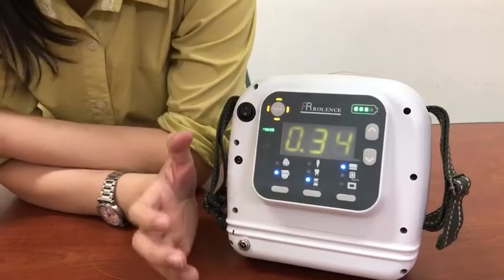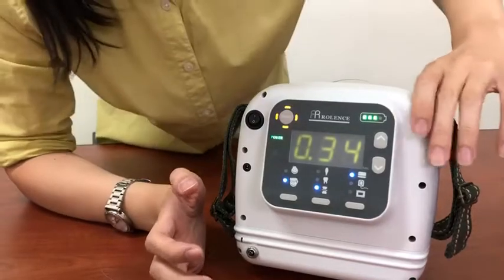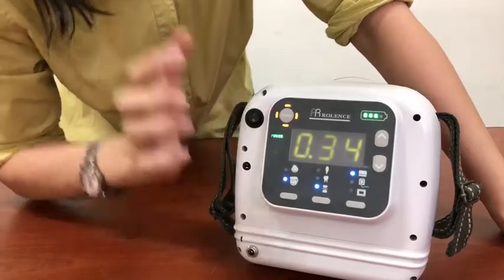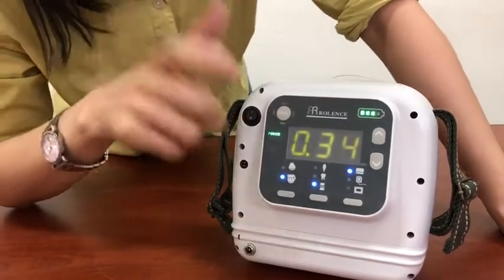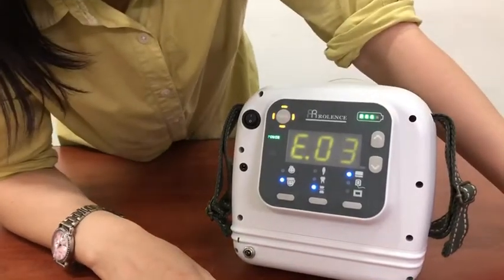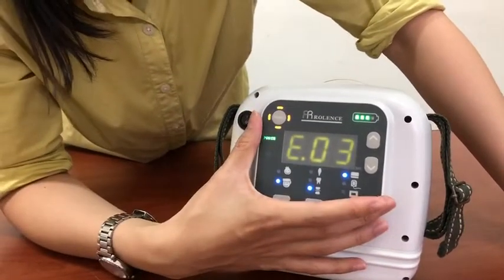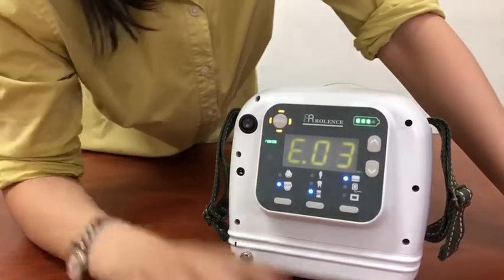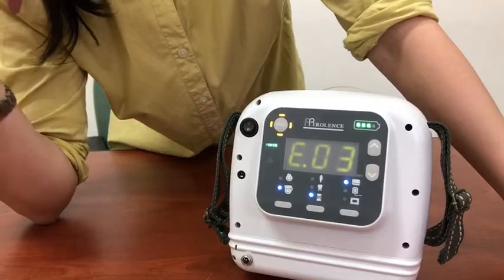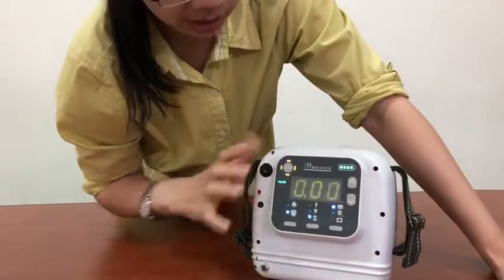But if I remove my hand, remove my fingers — what will happen? The orange light. The orange light means cooling down, so it will take a couple of minutes. Now you will hear the error call, and the panel will show E03, which means the exposure was not successful. So you can check our user manual for more information. Just turn off the power switch and turn on again.